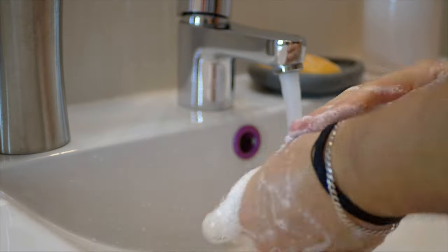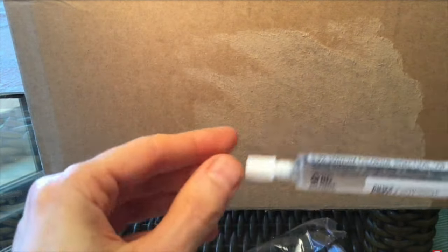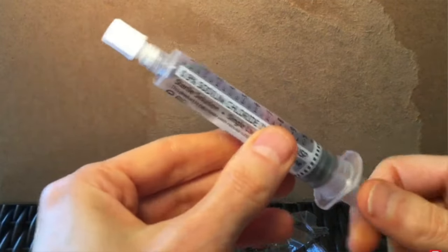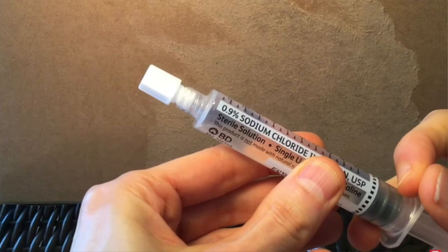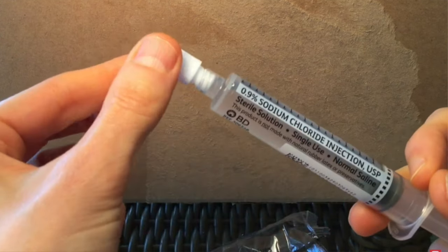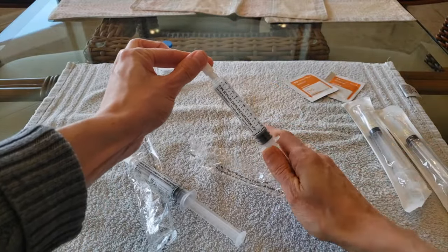Next, I thoroughly wash my hands with soap and water. I then open a saline flush, loosen the cap, pull down on the syringe to break the airlock, and then advance the syringe to push out any air which may be in the syringe. I gently tighten the cap and carefully set down the saline flush. I then repeat these same steps with the second saline flush.